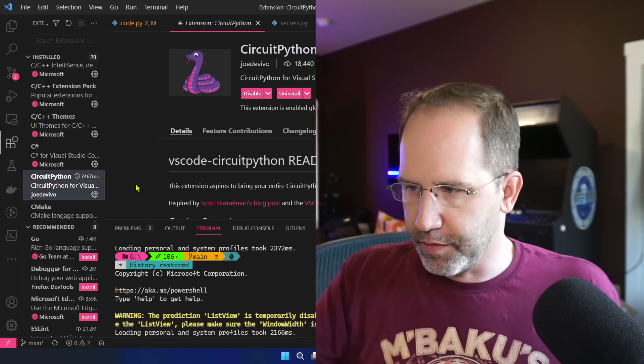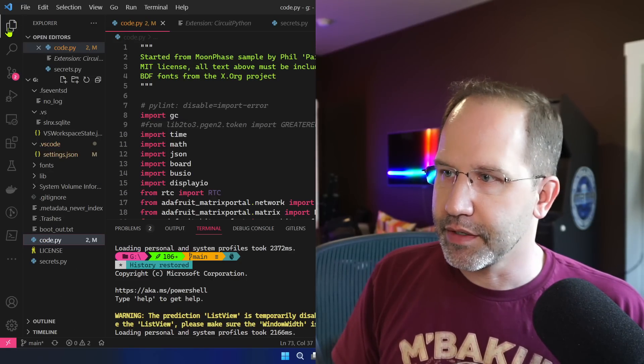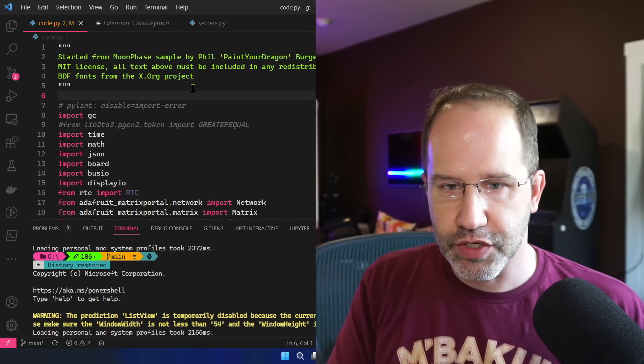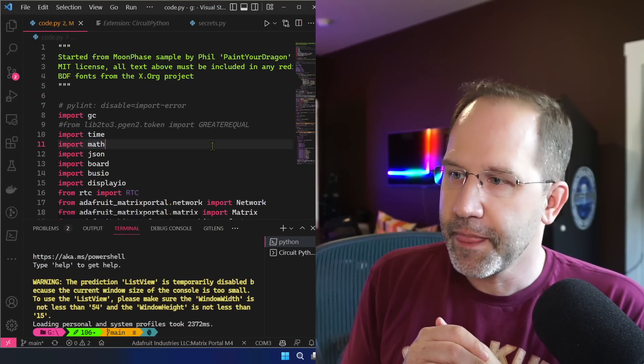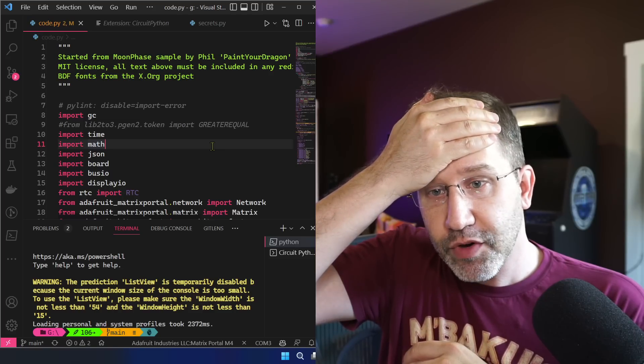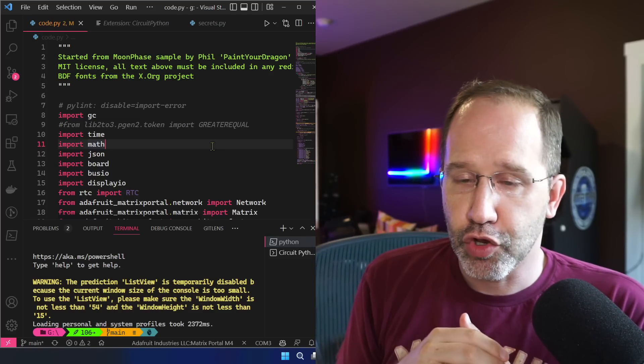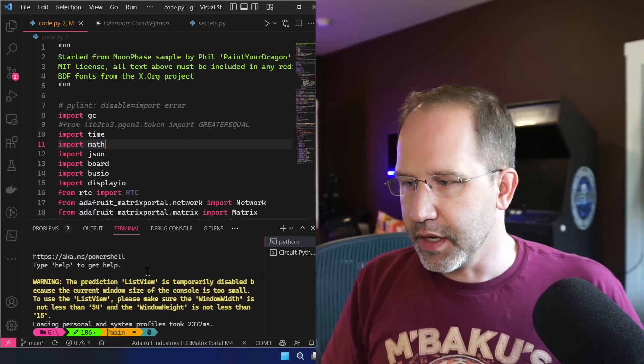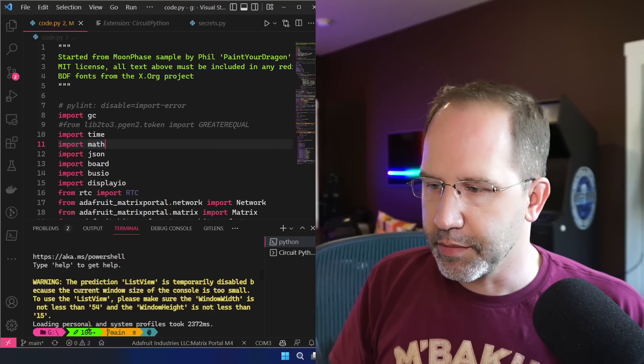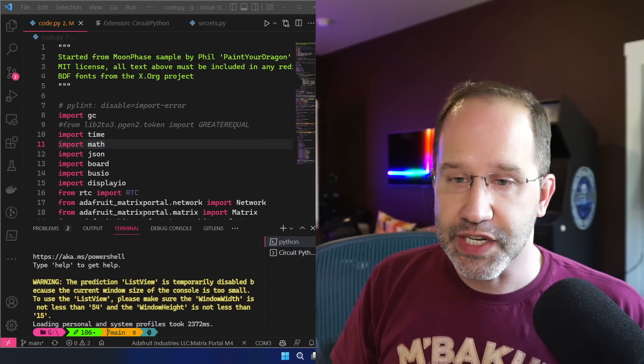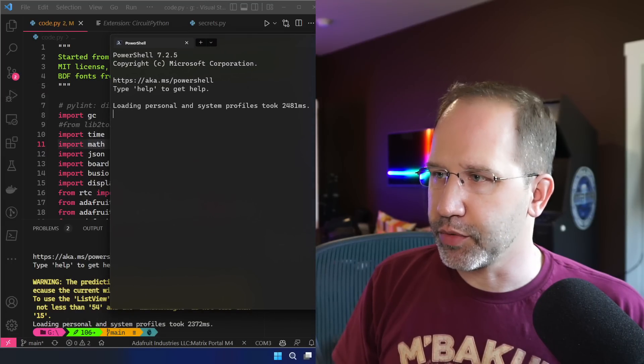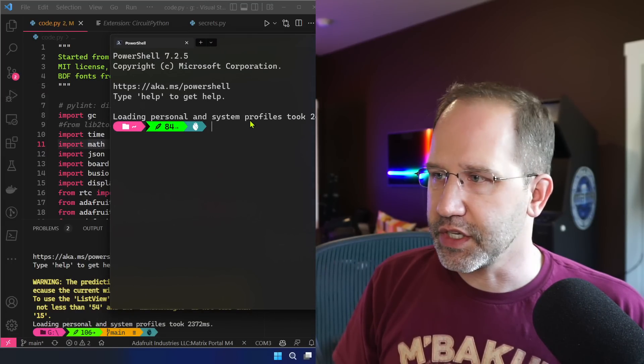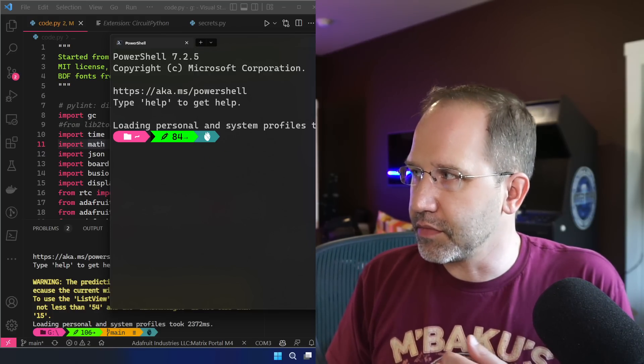Now again I don't speak Python so what I wanted to show you since I'm often teaching you C# is how someone that doesn't know a language can get it working and bumble along. I'm probably never going to be able to do idiomatic correct Python, so apologies ahead of time for my crappy code. Here's my prompt. You can see I have not refreshed my prompt so my blood sugar was 106 in that example, but if we bring my actual prompt over here you can see that there's currently 84 and that'll update every five minutes because it's coming off of the Dexcom sensor.